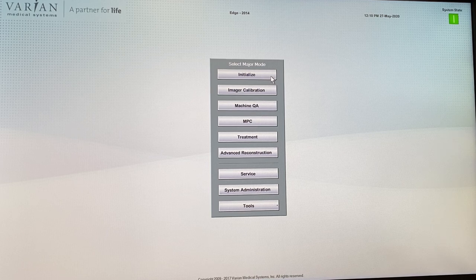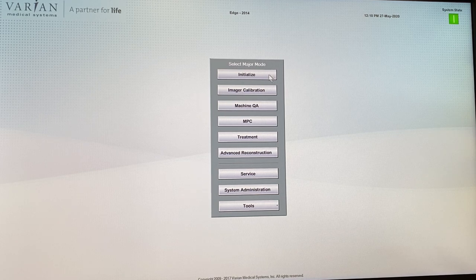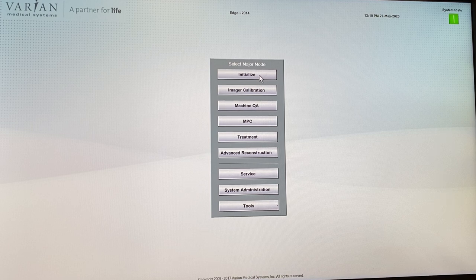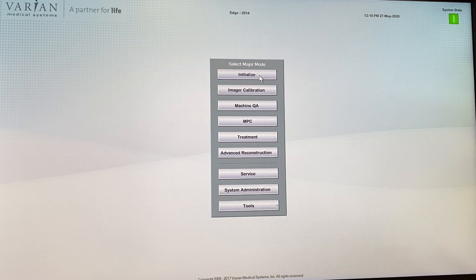Other things that need to be initialized include the MLCs, the carousel, and the collimator. The gantry does not need to be initialized, but the collimator, the jaws, the MLCs, and other moving components do. I generally don't use the initialize function because you can do all of those things from service mode. Initialize is nice because it shows you a list of things that need to be initialized, but it won't let you initialize them simultaneously, whereas in service mode you can do it all simultaneously.